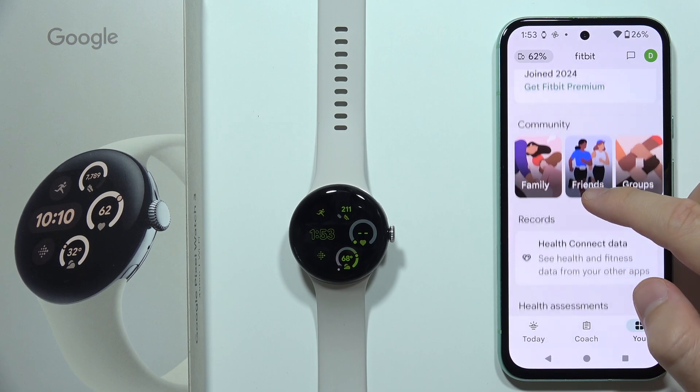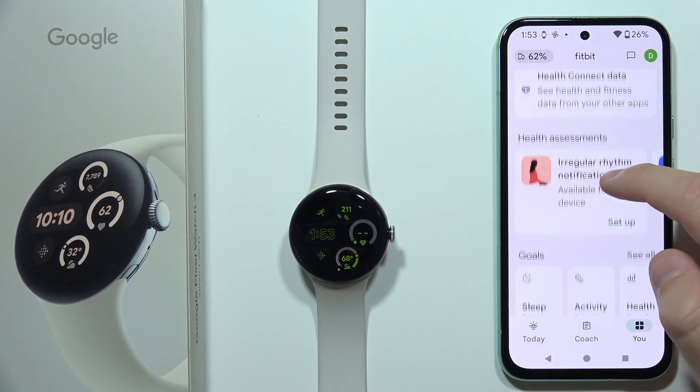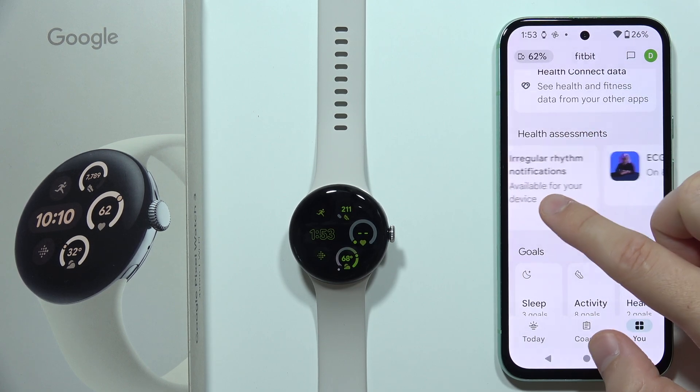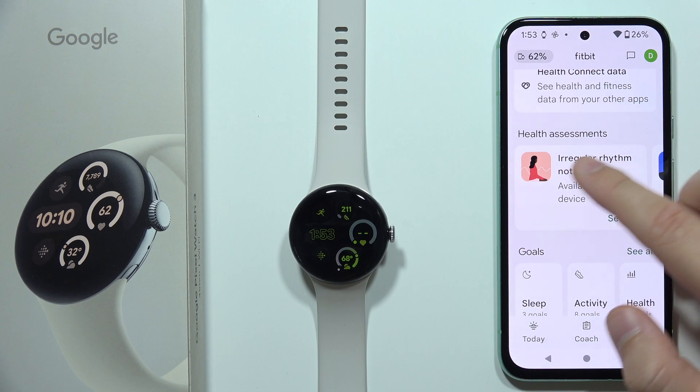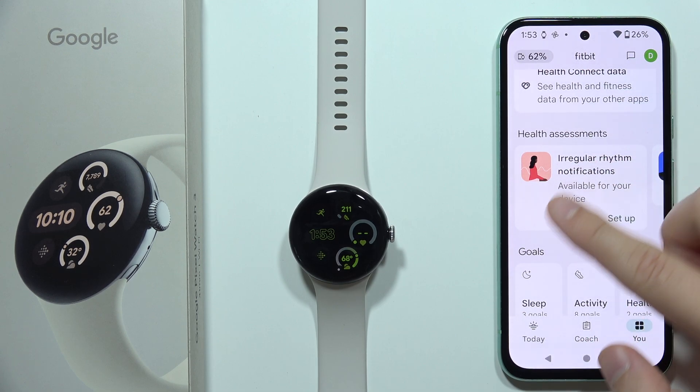From all of these options, you have to go to Health, and here you will have to look for Irregular Rhythm Notifications.